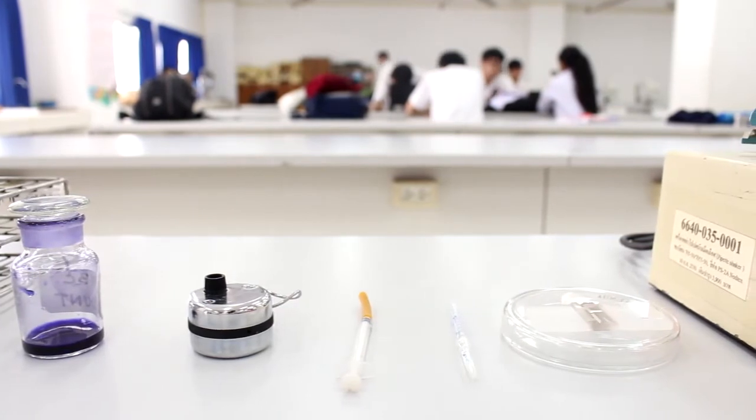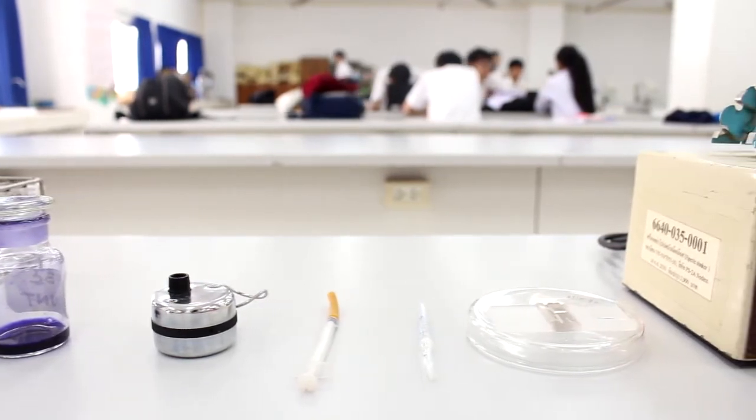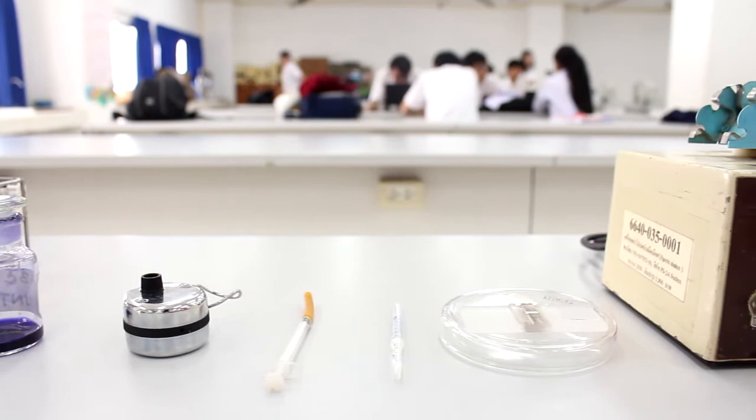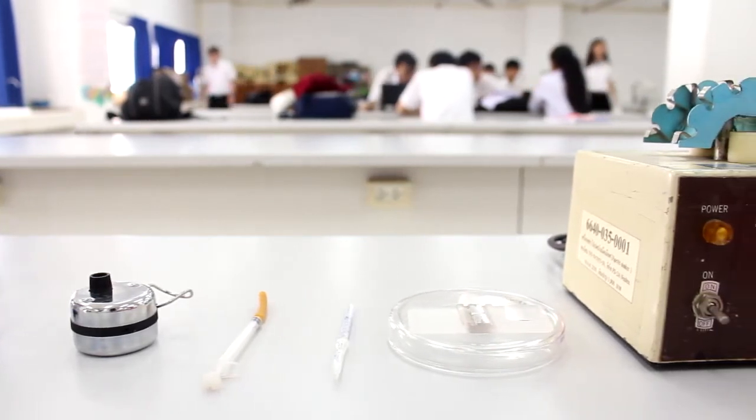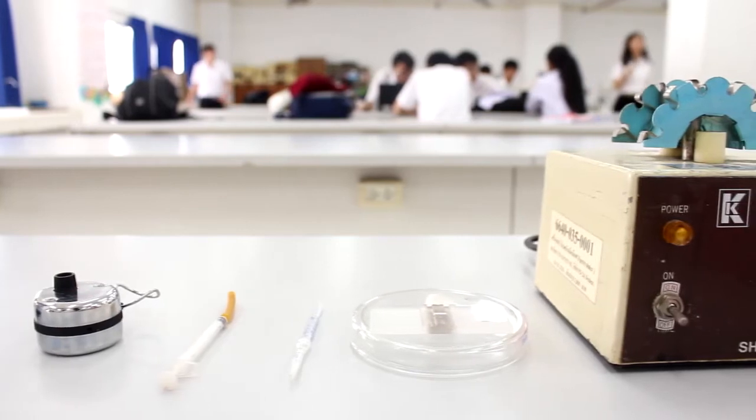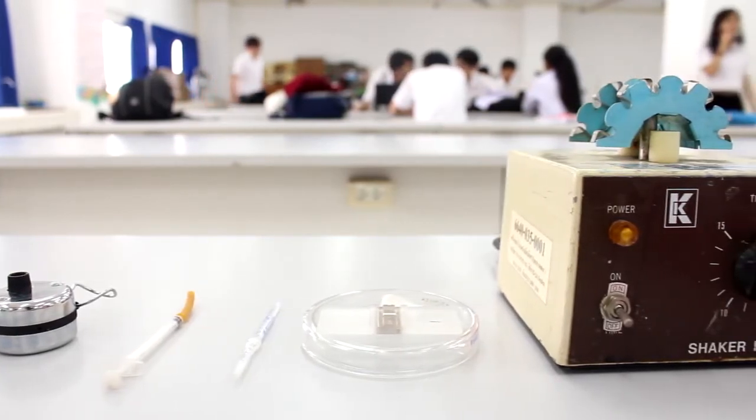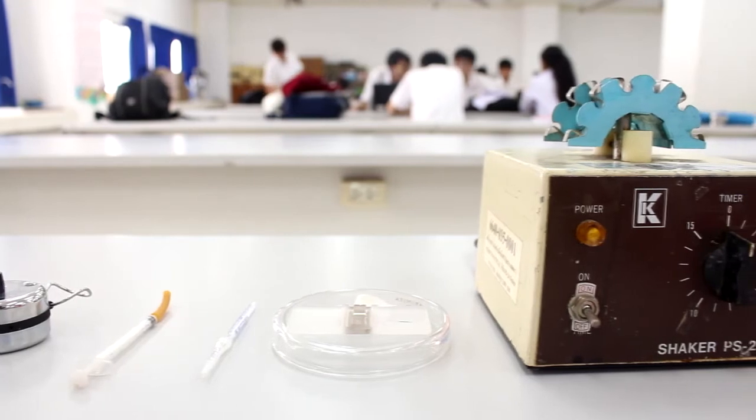When an instrument is non-functional and there is no backup in remote laboratories, manual cell counts are performed using a hemocytometer or counting chamber and manual dilutions made with calibrated automated pipettes and diluents.